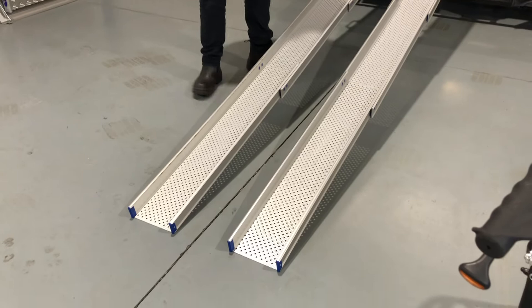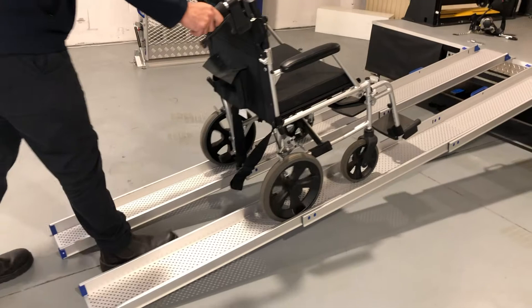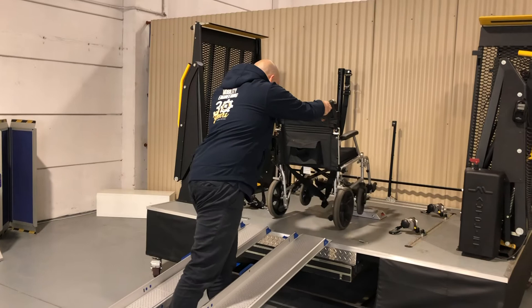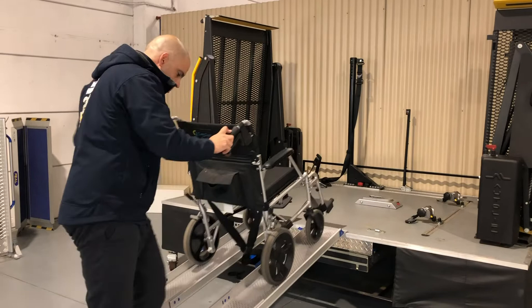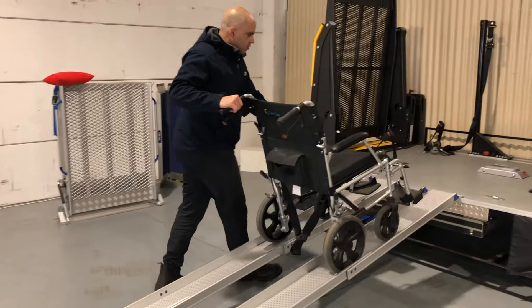When pulling the wheelchair into the vehicle, you have multiple options and flexibility. I can walk in through the middle like so, and if I can fit and comfortably navigate myself, I can load my wheelchair in, lock it in, and take my ramps off. Or if I want to, I can load it in from the side — standing over on the side, depending on my dexterity and my abilities, I can pull this up and just up and into the vehicle.